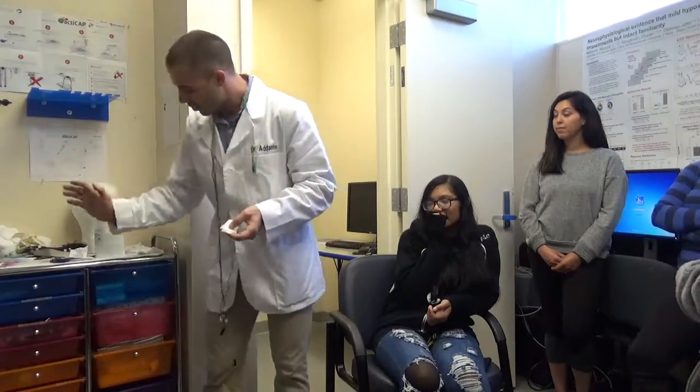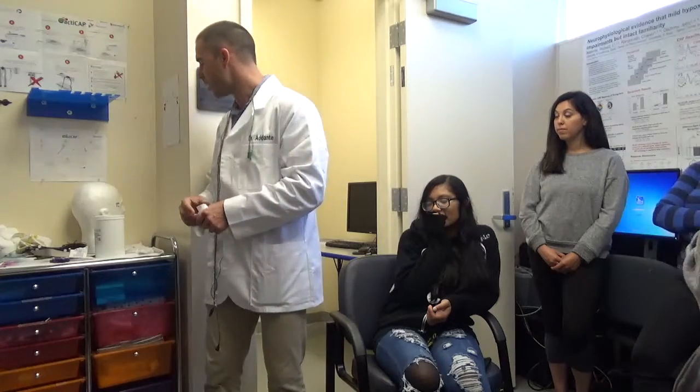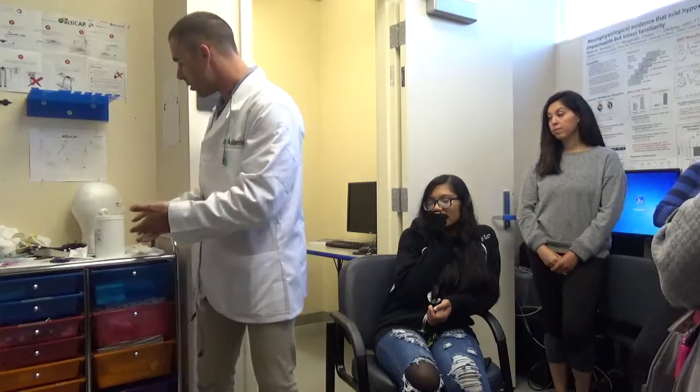And then we commence. So you do all that stuff, we get everything going. As you can see, we've got all of our stuff here. These are our different drawers where our different equipment lives. We don't finish the experiment with this stuff up here. We put it all away in its proper places. Your lead researcher in your sessions will show you where that goes and how that works. But we'll have that set up and ready to go.